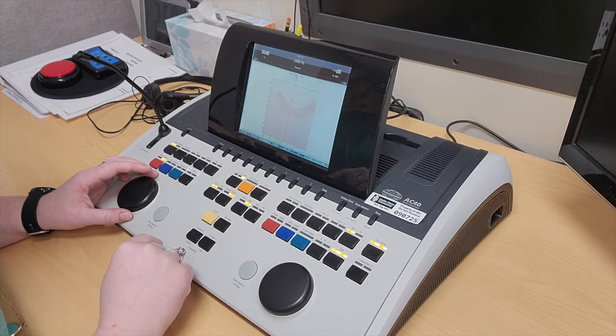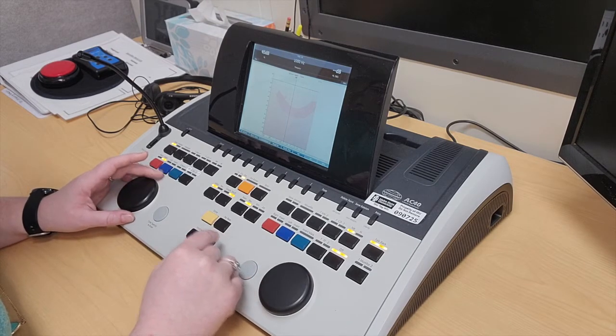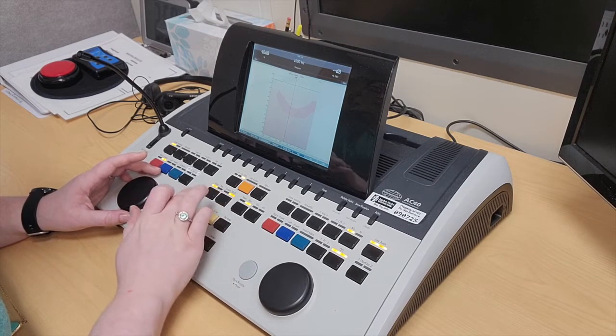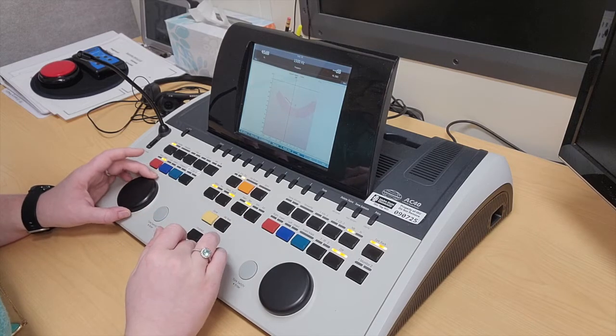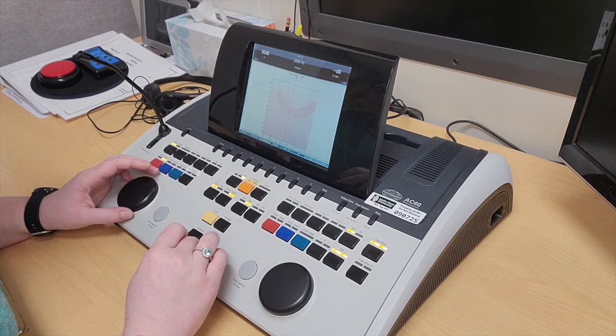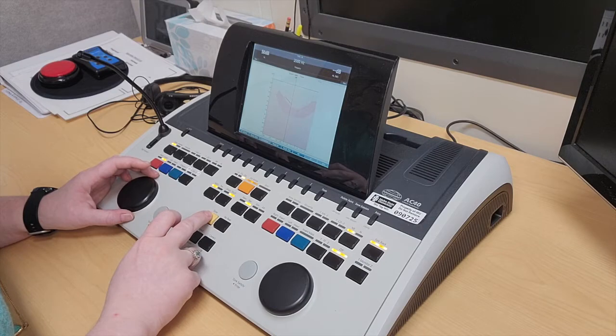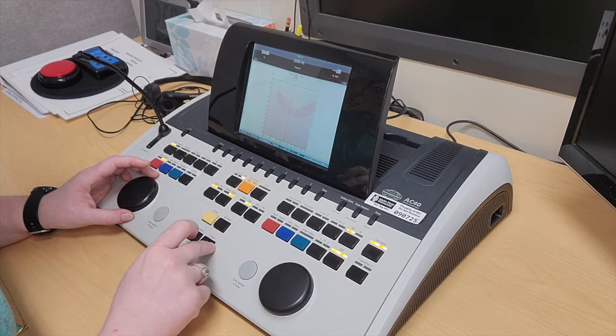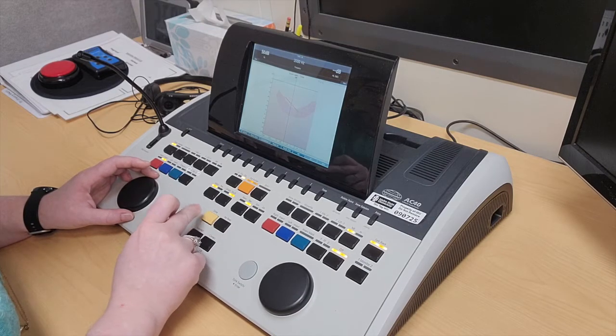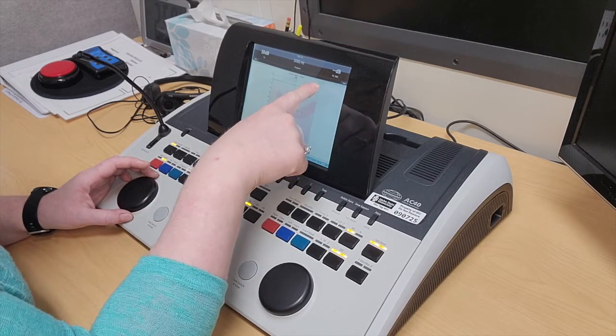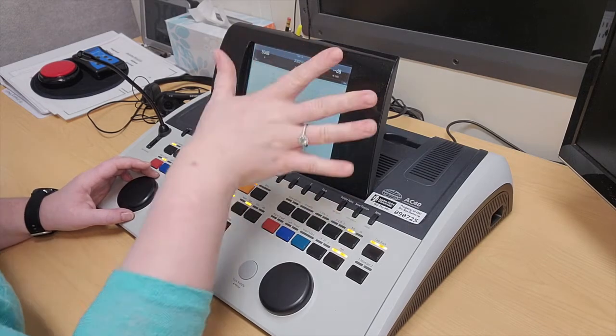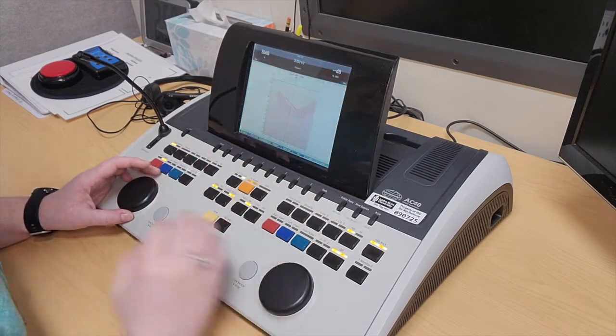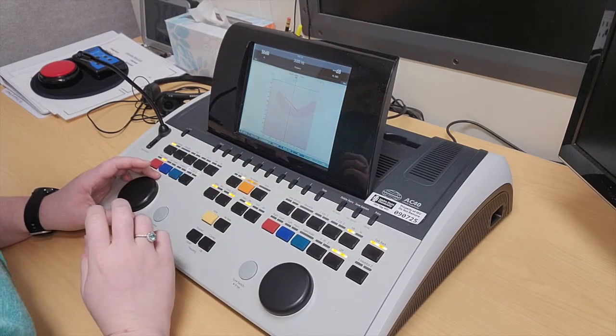Go up to 1000 hertz and set it for 40 dB. Then go up to 2000 and set it for 50 dB. It'll calculate it right there, showing my PTA is 40, which is accurate for this set of thresholds.